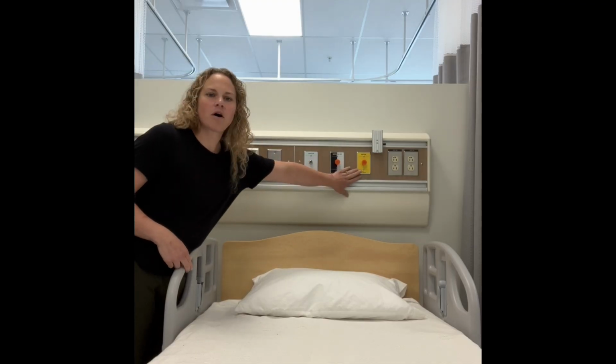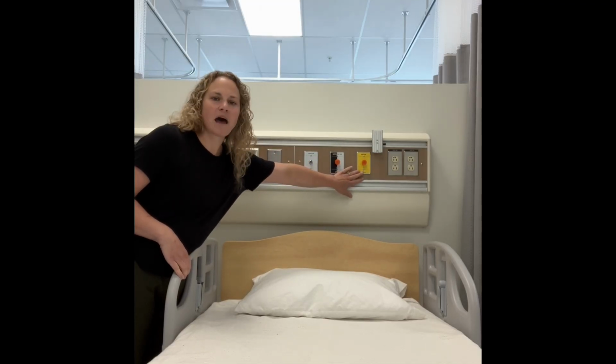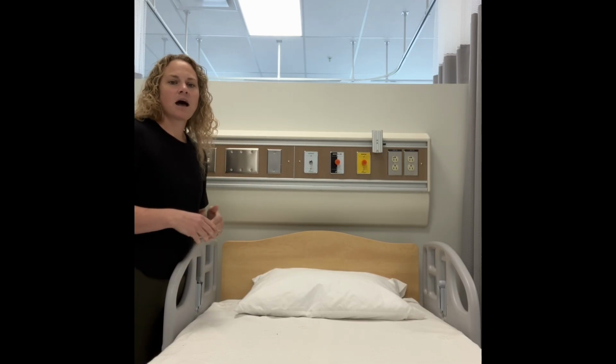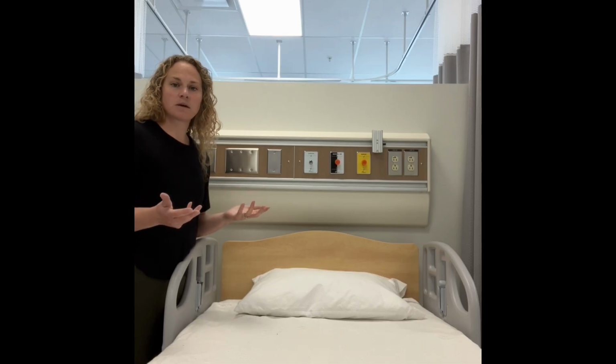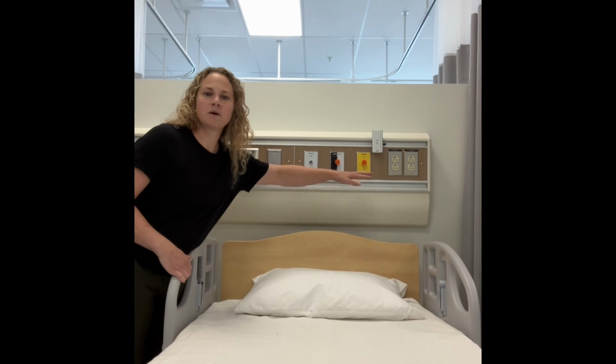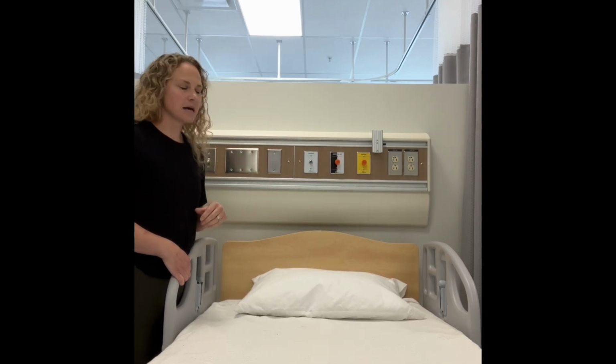The yellow one on the side here that says MedVac, this is a suction setup. So this would be used to suction up fluids, either when treating a patient or in surgery or anything like that. You would connect a tube and then it would pull those fluids up.